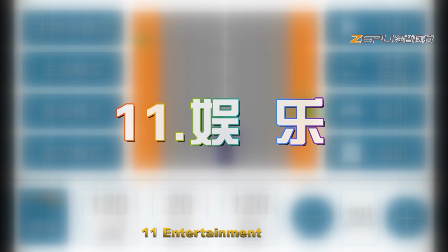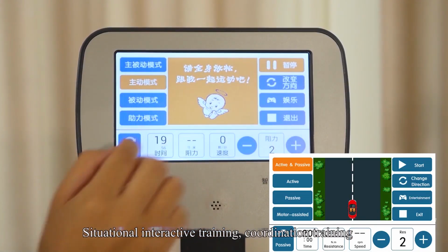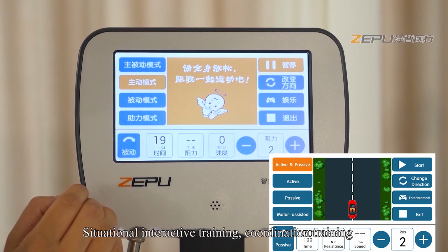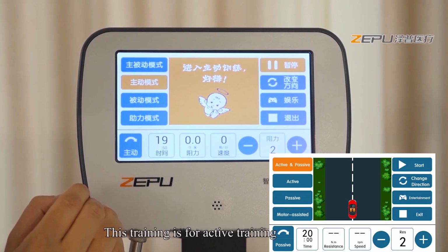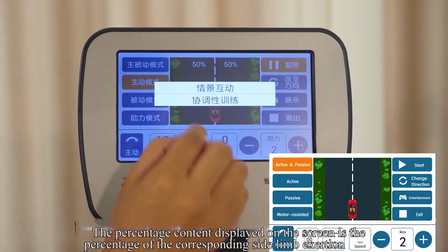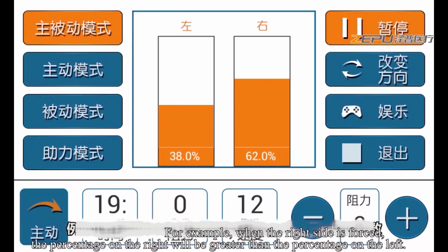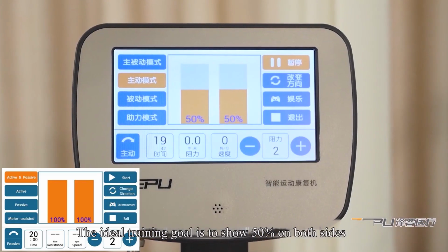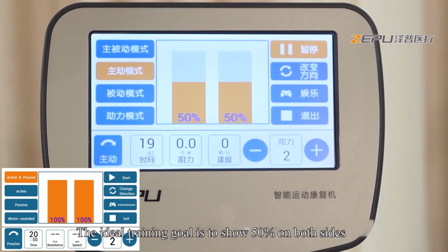11. Entertainment. Click Entertain on the screen. Situational interactive training. Coordination training. Choose one to enter the entertainment interface. This training is for active training. The percentage content displayed on the screen is the percentage of the corresponding side limb exertion. For example, when the right side is forced, the percentage on the right will be greater than left. The ideal training goal is to show 50% on both sides.